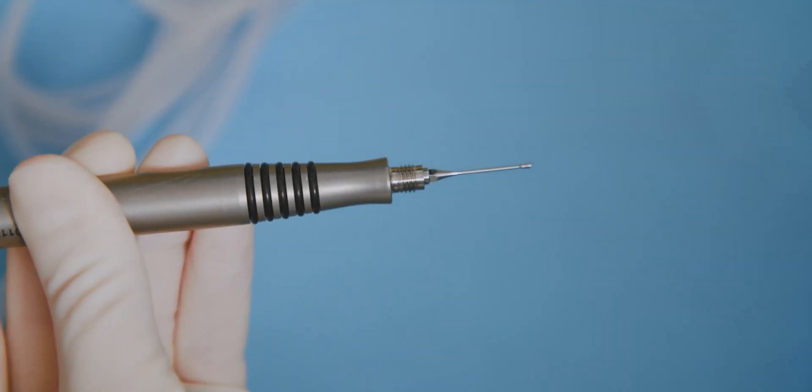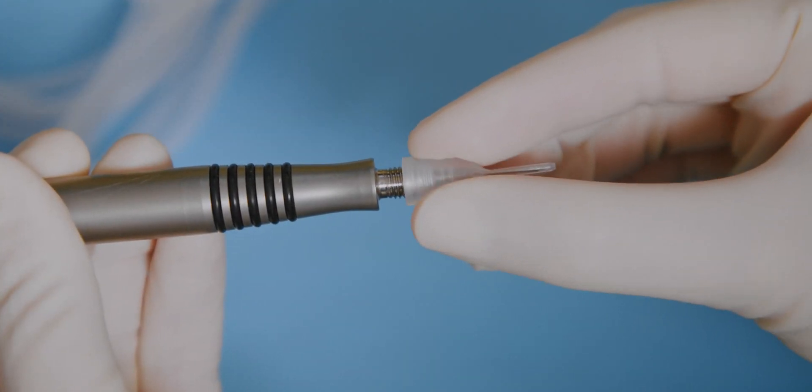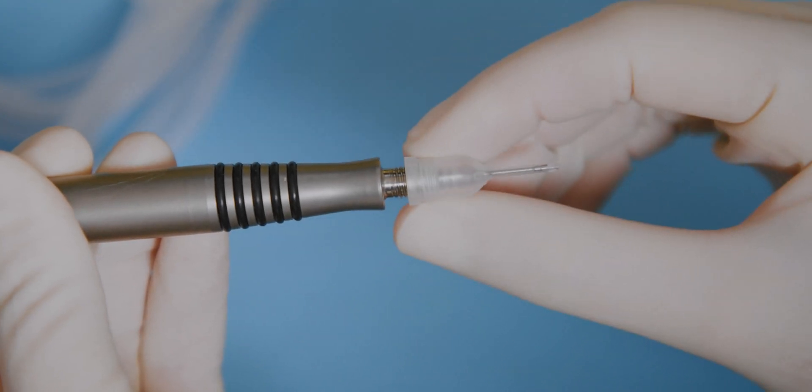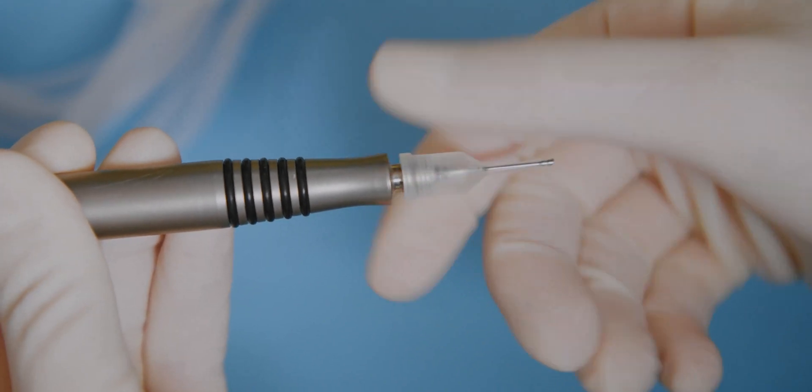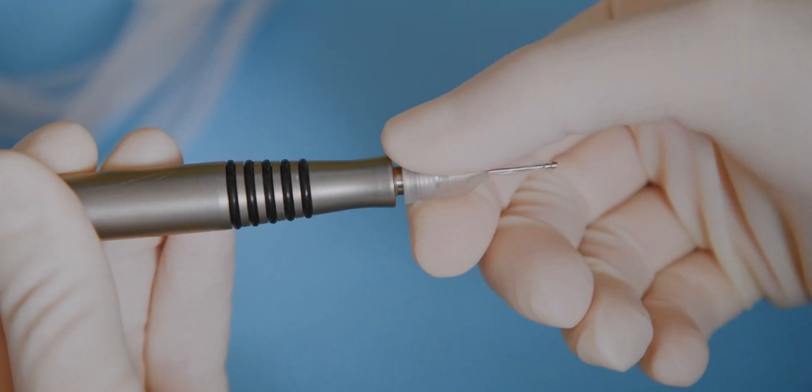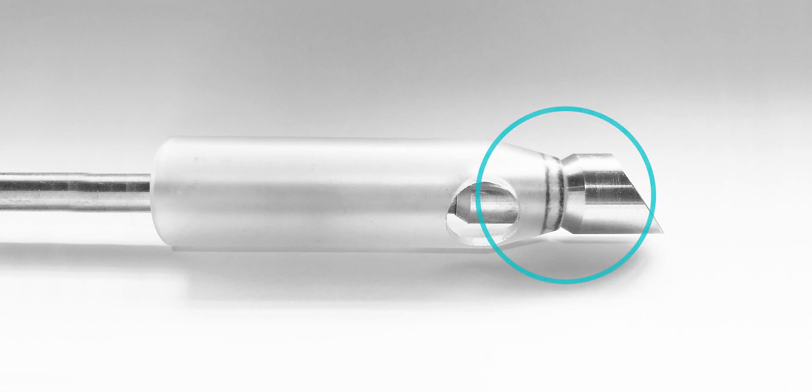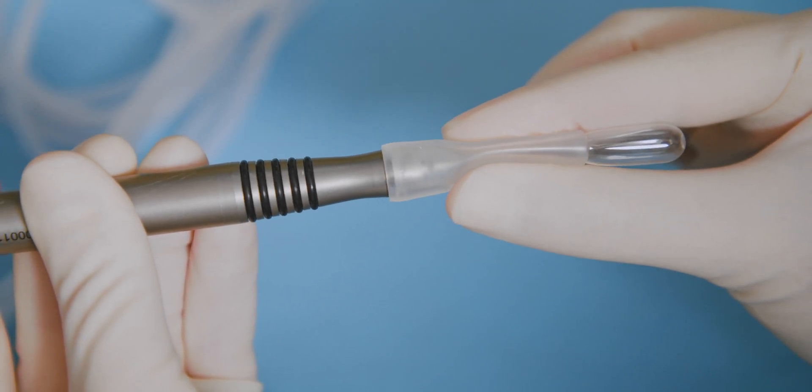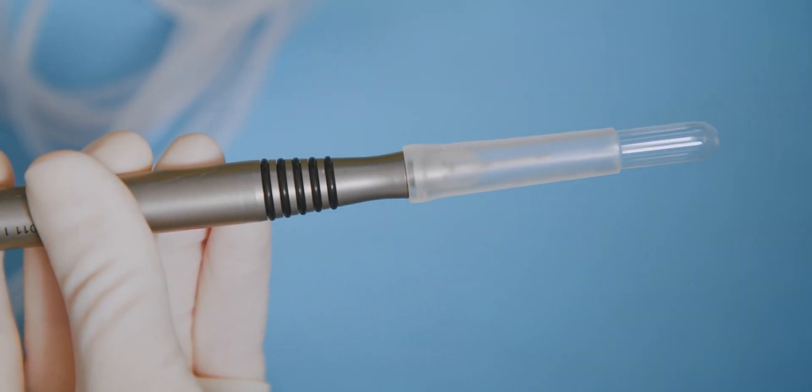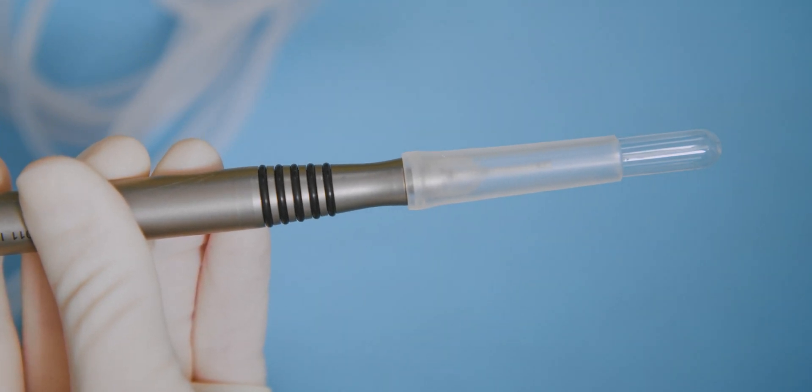Remove the pre-fitted key by pulling in a straight line. Place the sleeve over the phaco tip. Get the sleeve orientation correct by adjusting the irrigation sleeve until the tip of the sleeve borders is on the angle of the phaco tip. Secure the test chamber over the irrigation sleeve. Pull the test chamber over the tip and sleeve until the back end is flush with the irrigation sleeve. The irrigation sleeve must come up to the bevel of the tip.